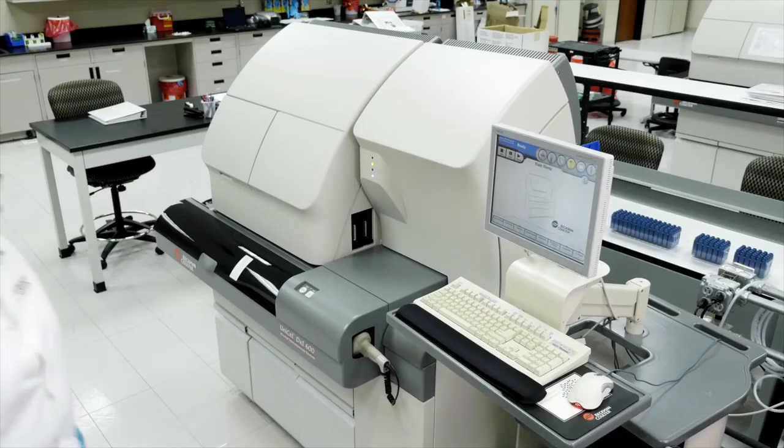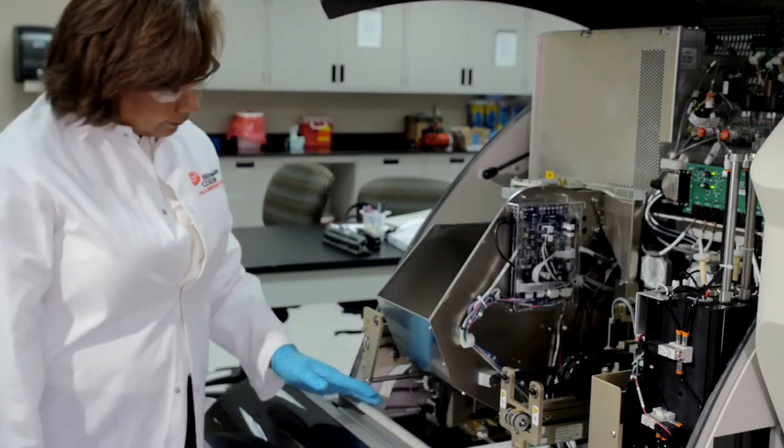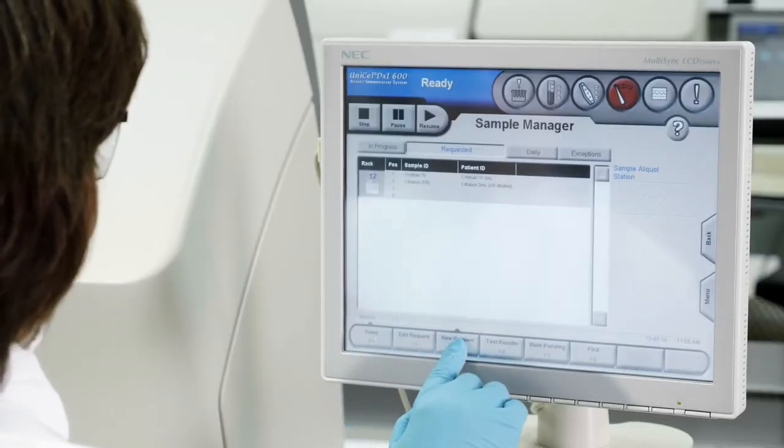Clearly, whether performing daily cleaning tasks or scheduled test volume interval procedures, the maintenance process is one of the fastest in the industry.